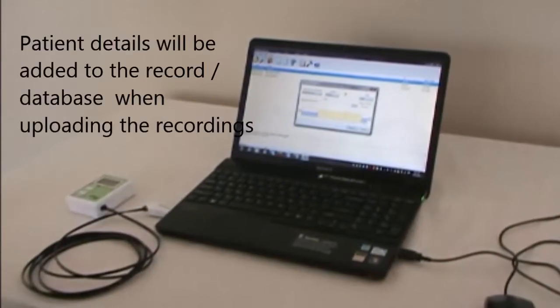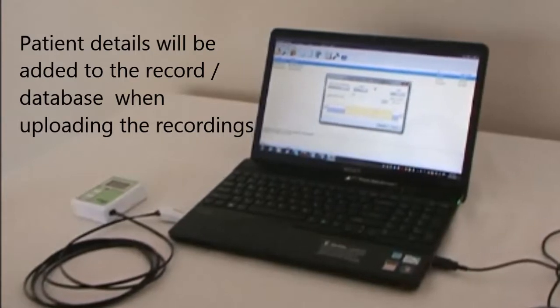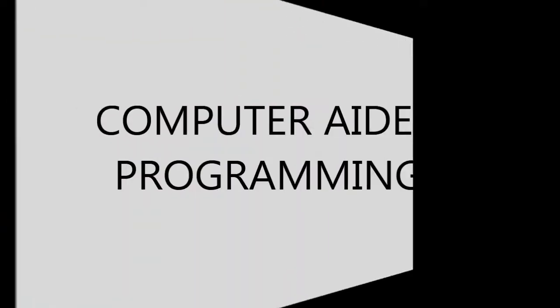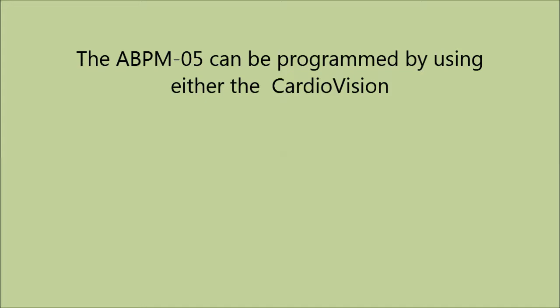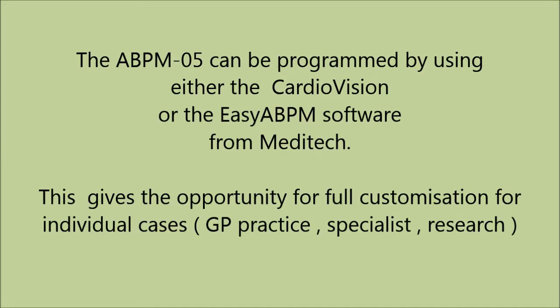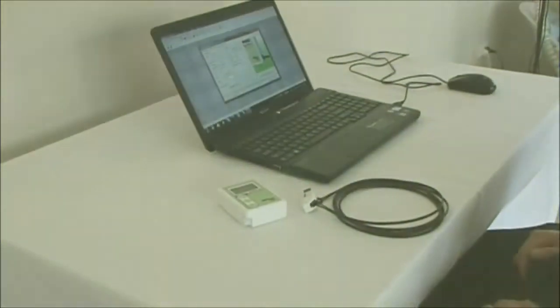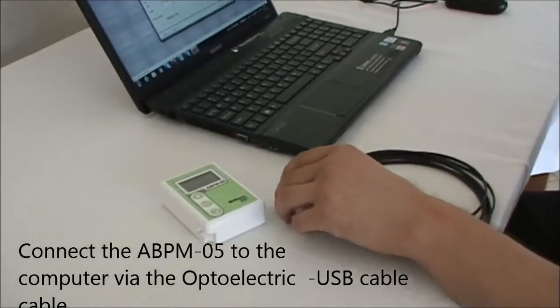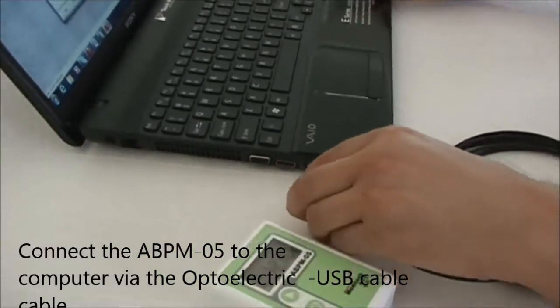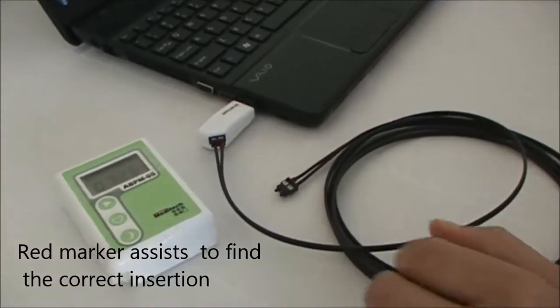Patient details will be added to the record during the uploading process. The ABPM05 can be programmed using either the CardioVision or EasyABPM software from Meditech. The recording database readings are fully compatible and can be converted from one to the other. Sending the program to the device requires a special data transfer cable called Optoelectronic.